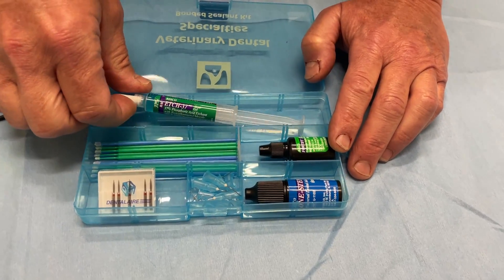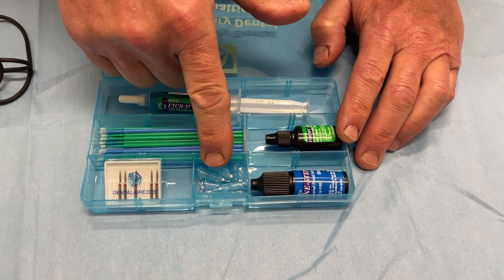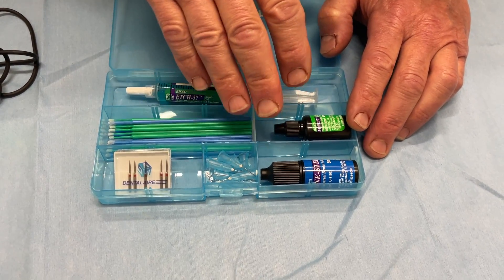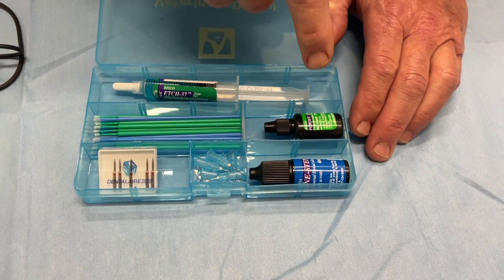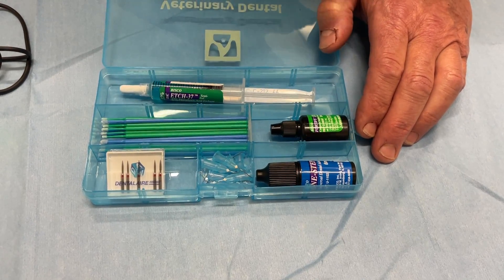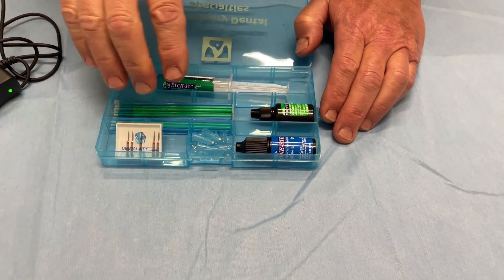After you smooth the tooth out, we have a large thing of acid etch to condition the teeth. Some extra tips in there. And then we have our actual agents. So the one step is the actual bonding agent. And then the Fortify is the unfilled resin that just kind of is the lacquer that goes over the teeth and protects it.